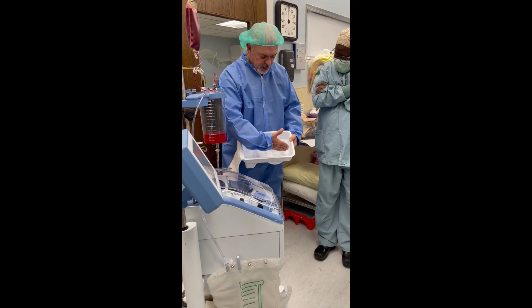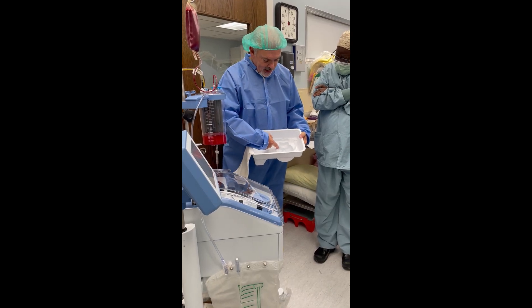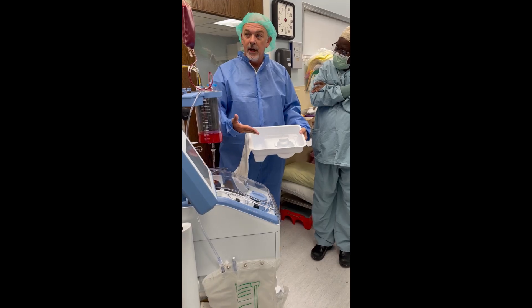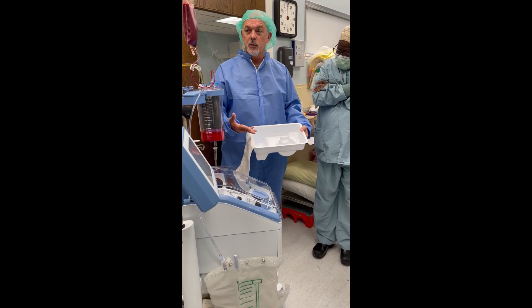Most of your volume is sitting in the lower half because it's wider. Somewhere about halfway you're going to get a crit over 40. Somewhere around halfway, I think that's a decent partial bowl.